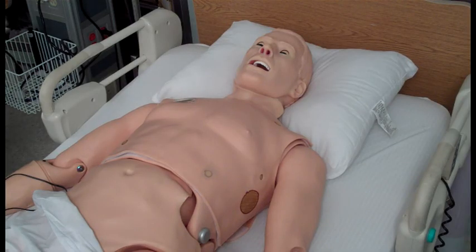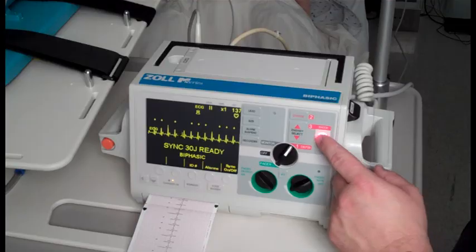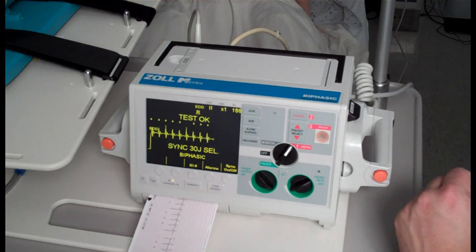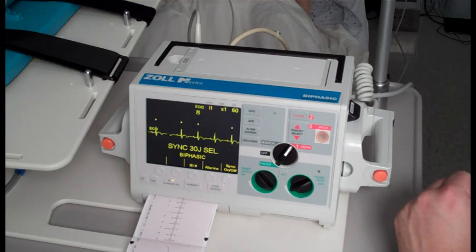Hal's conductive skin sites allow the attachment of real electrodes and defibrillator pads. This feature permits the user to track cardiac rhythms and events with their own equipment, just like with a human being. Hal can be shocked or paced with real energy for cardioversion, defibrillation, and pacing drills. Keeping that in mind, it is important to take all precautions when using the defibrillator, since it passes real electricity and there is potential for serious injury. An AED will display Hal's ECG, analyze his cardiac rhythm, and advise action.